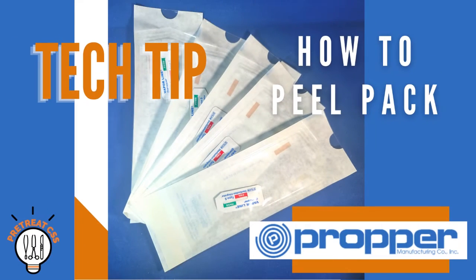How to peel pack. Peel pouch is industry jargon used to describe the paper-plastic pouches that are generally used for small, lightweight, low-profile items. Peel pack is the action of preparing the item of choice for sterilization by placing it inside of the paper-plastic pouch. There are a variety of paper-plastic pouches on the market available to central sterile professionals. Despite the product we use to ensure sterility, there are a few rules and checks to go by that remain the same throughout.